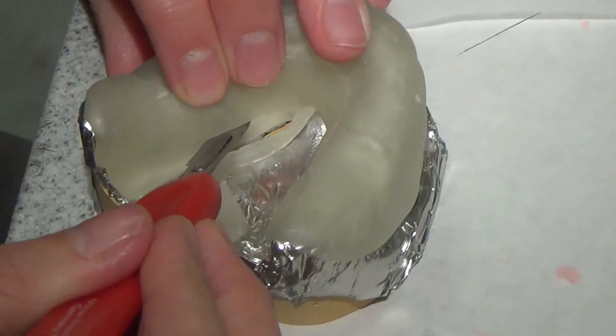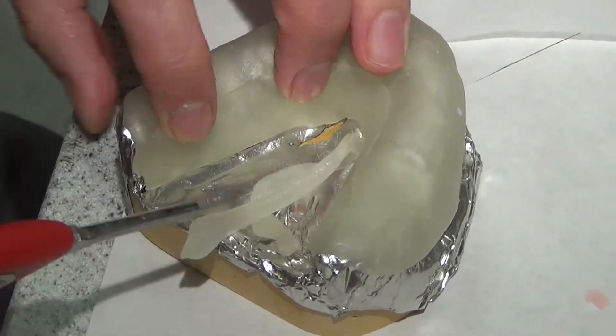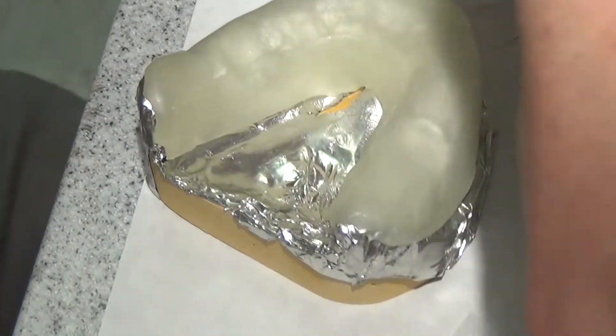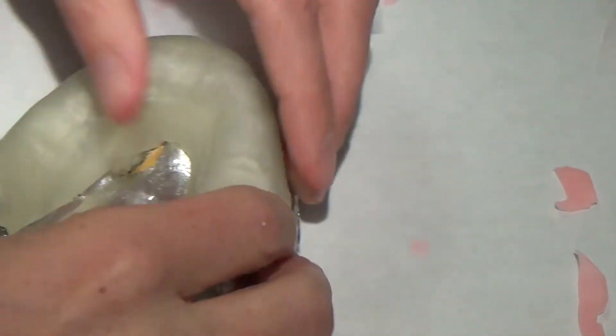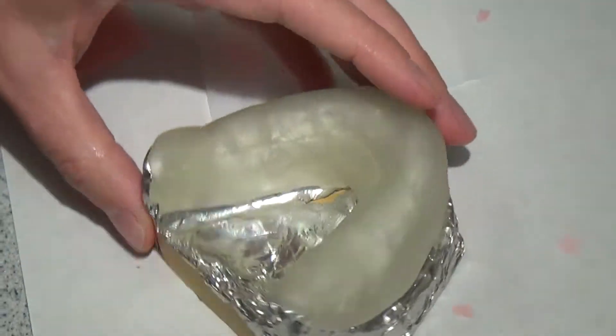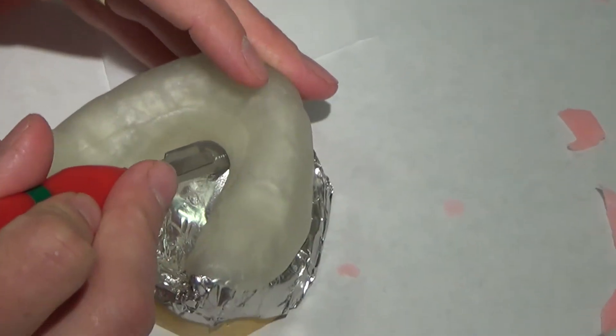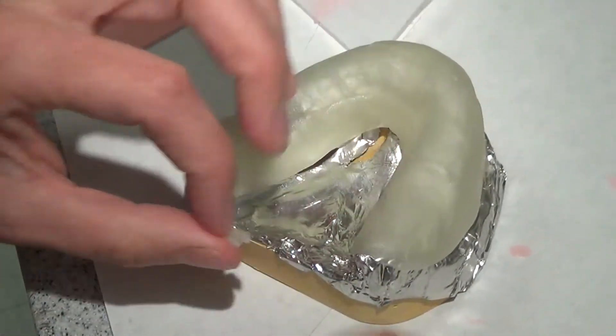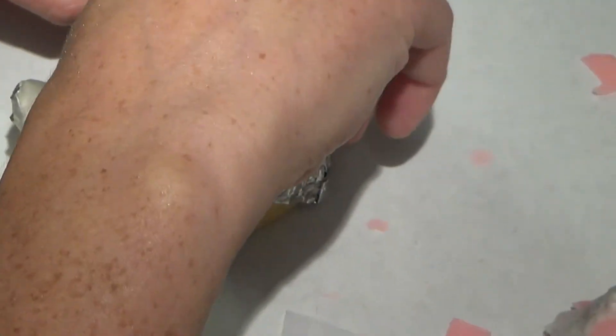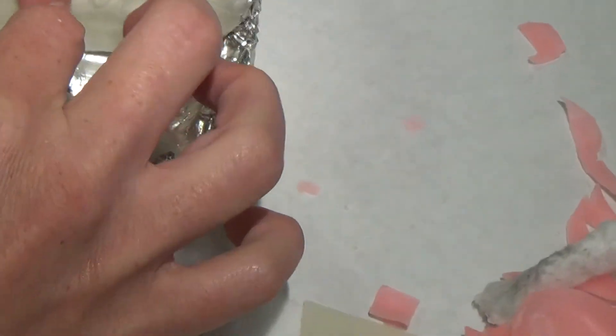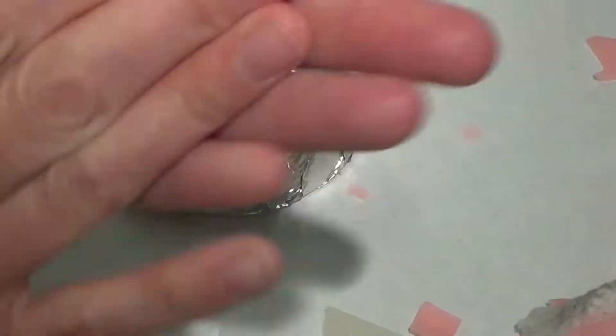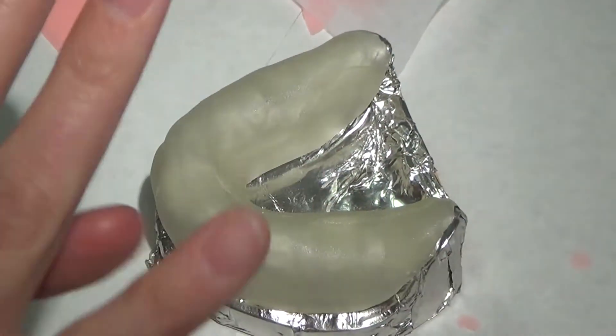And the nice thing about when your fingers—sorry Dr. Pearson, I just put my head right in your way, didn't I? Y'all wanted to see the back of my head. Okay, when your fingertips are wet, they will—it won't pull this as much off the cast. Right now, as I push on it, it kind of bounces back a little bit. So make sure that you have a little cup, Dixie cup or something of water next to you.